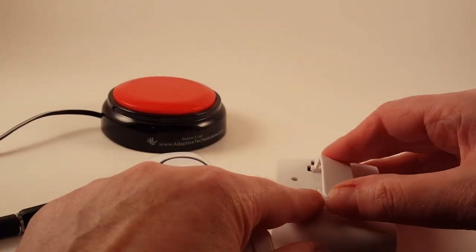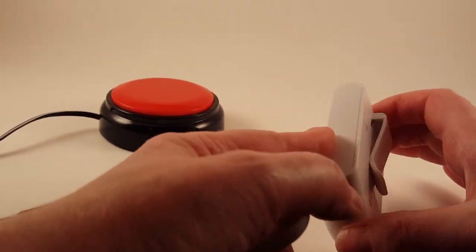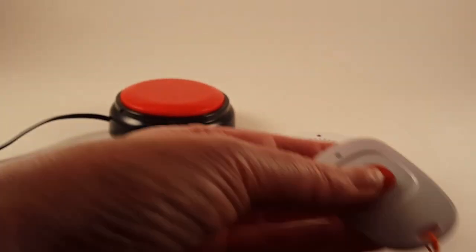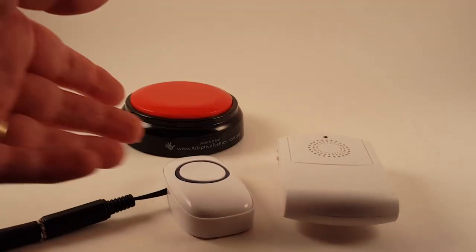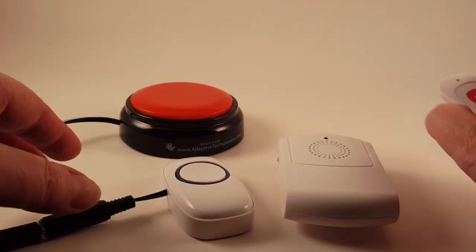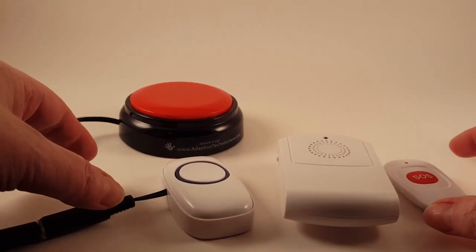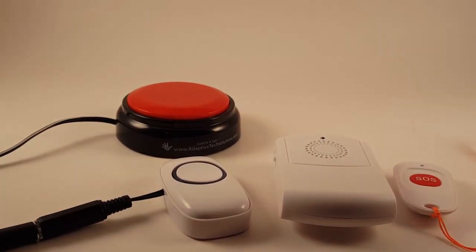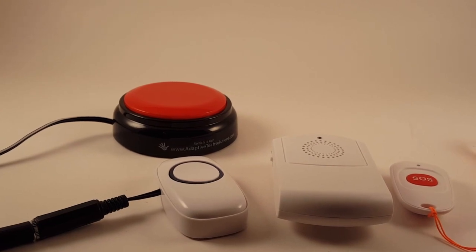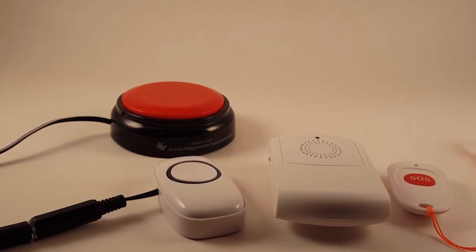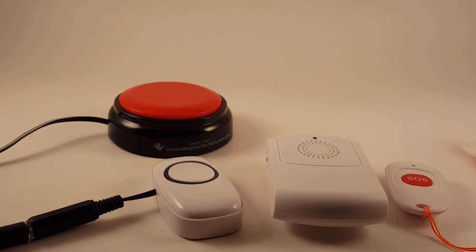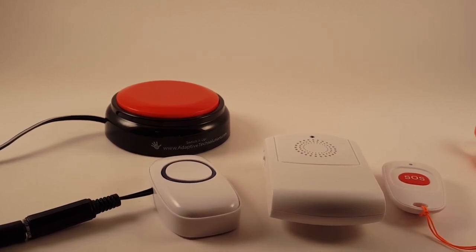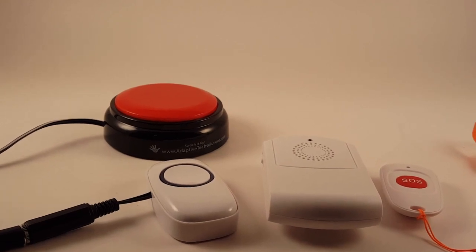And then you're good to go, and you can just slip your clip back on. And like I said, you can pair up a whole variety of these. There's a ton of different chimes to choose from, and so you can do quite a few of these. So this is a really awesome system that's set up, and it's got a really long range on it. Of course, it's going to vary depending on what your building is like, the structure of your building, but this is just a perfect caregiver alert setup. That's it. Thank you.